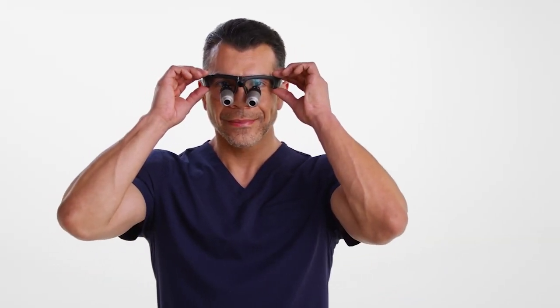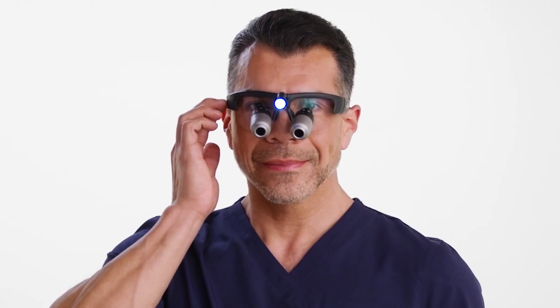You are the essential element behind the unmatched fit and performance of Orascoptic Loupes. Because when your loupes feel a part of you, they help you achieve the absolute best you.